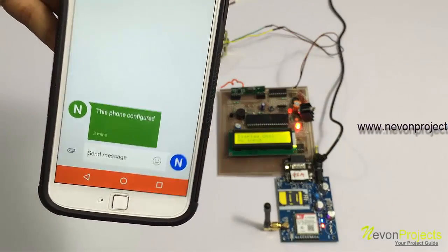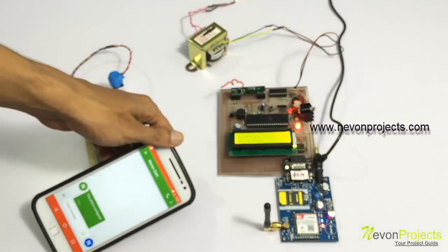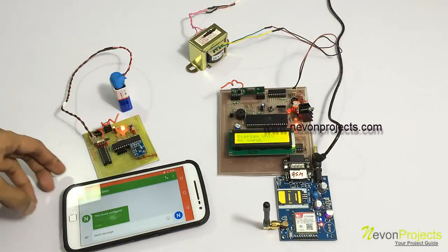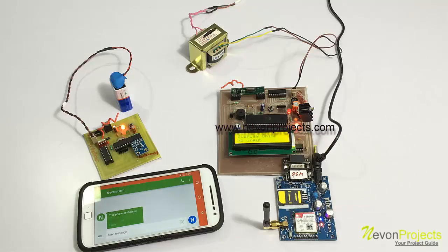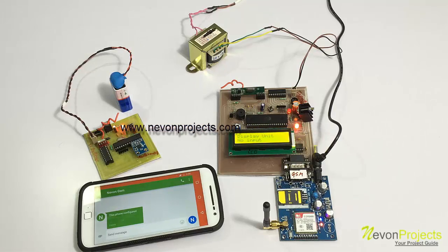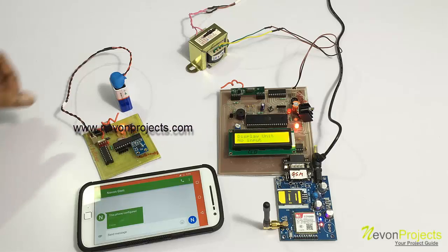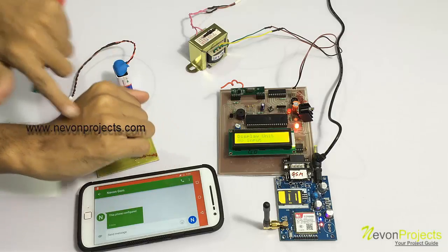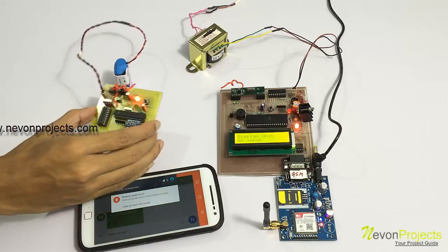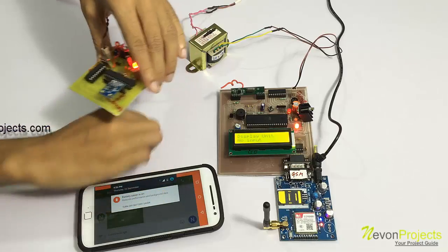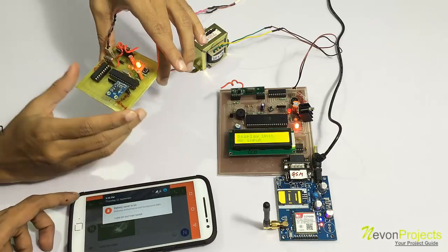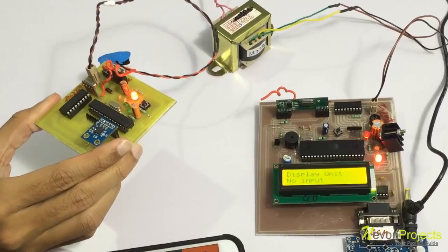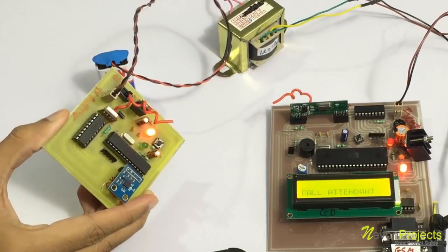Now let's see how the message conveyor works. The person will be wearing it on his hand here like this, and it would be mounted in this way. It can be mounted on a glove or something.